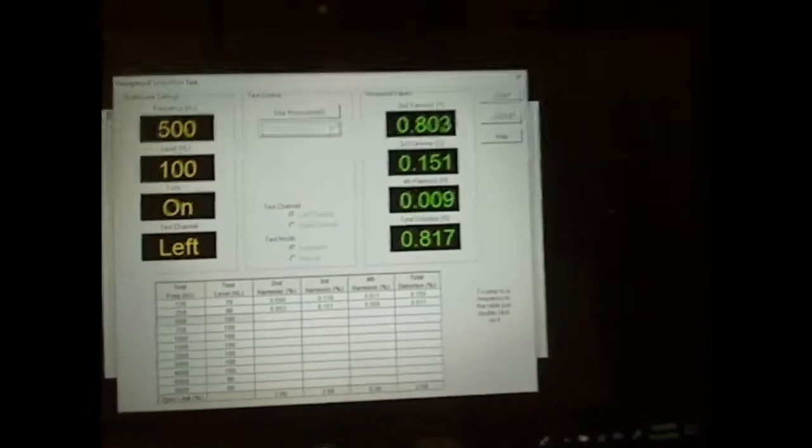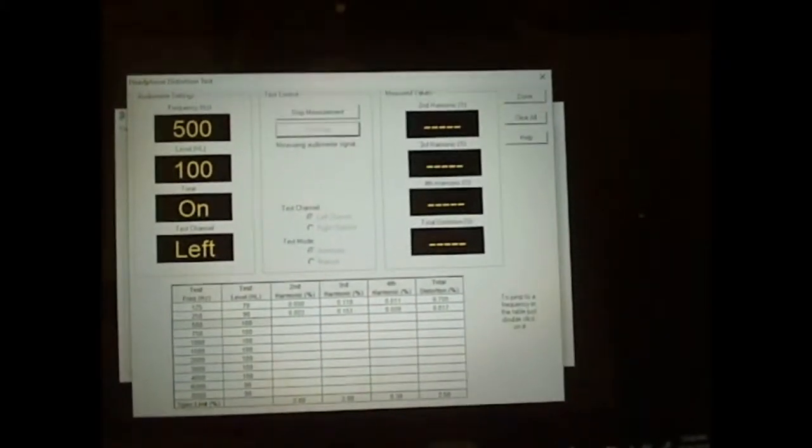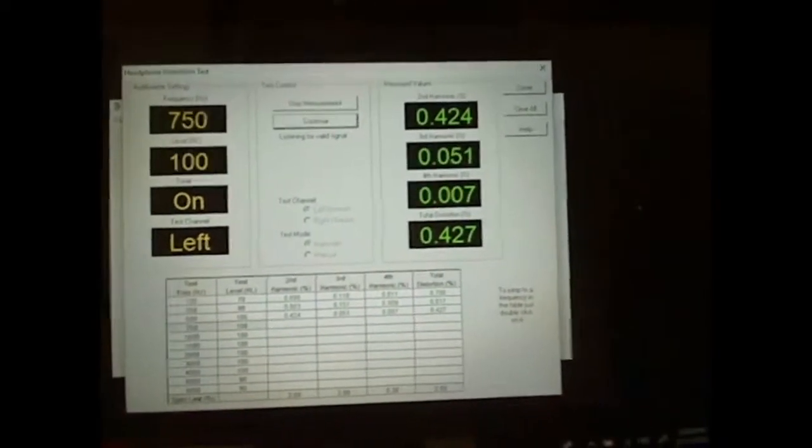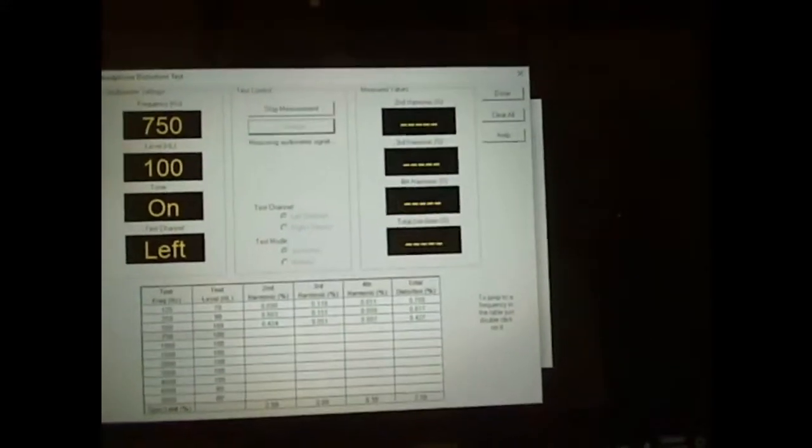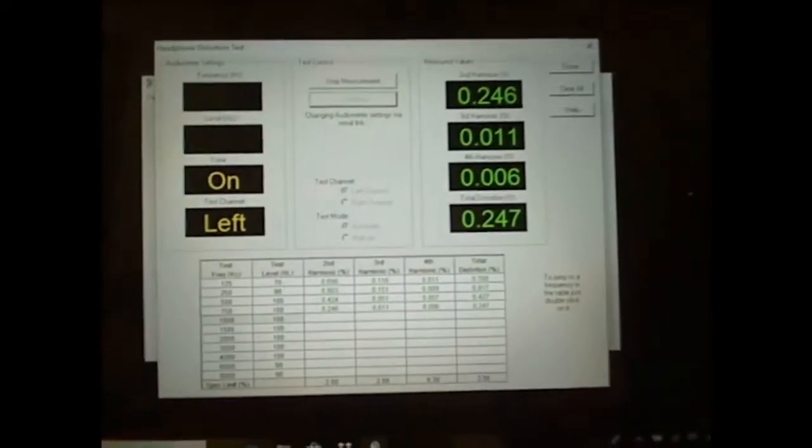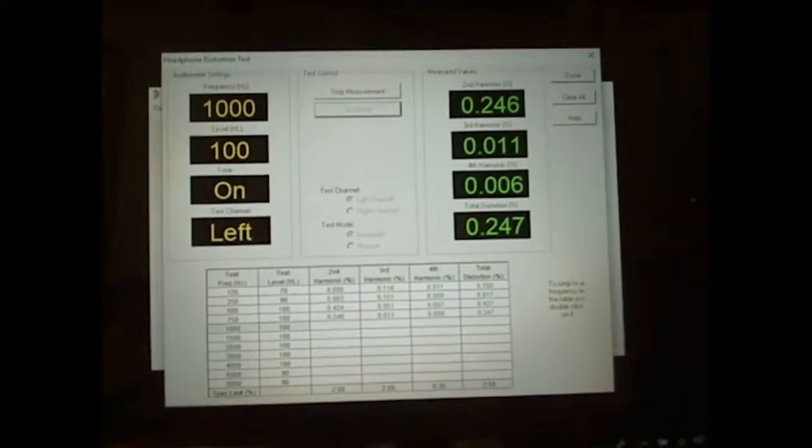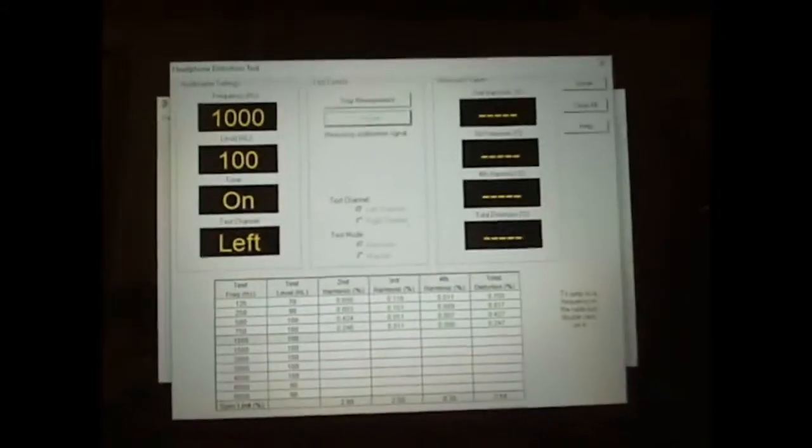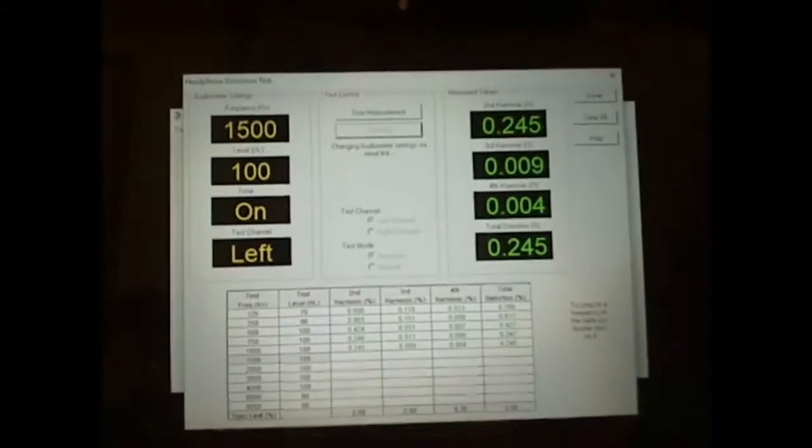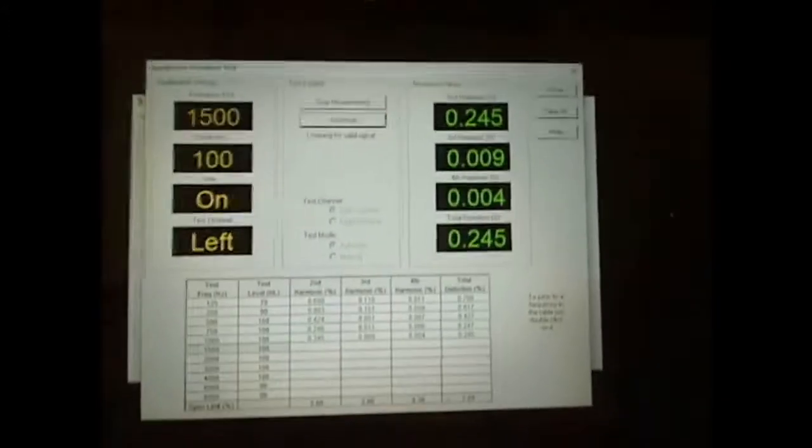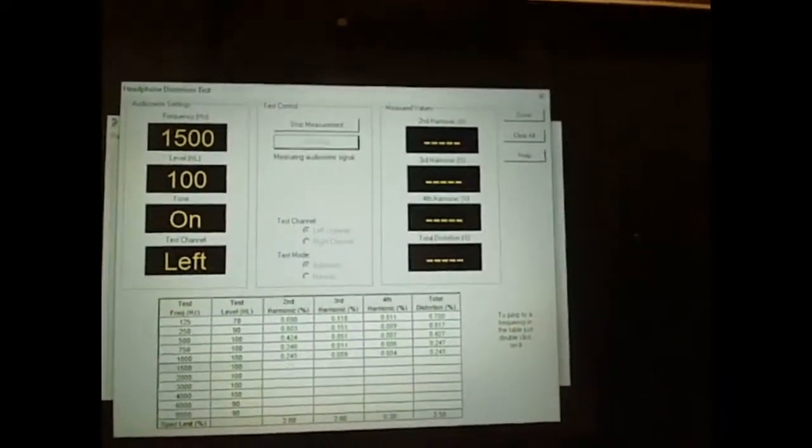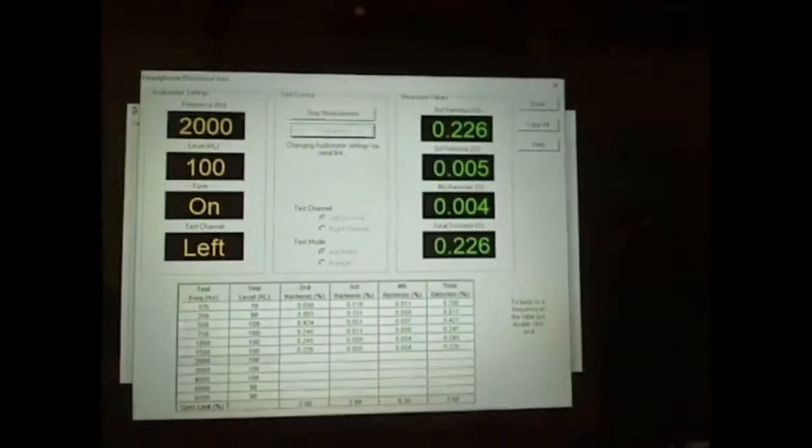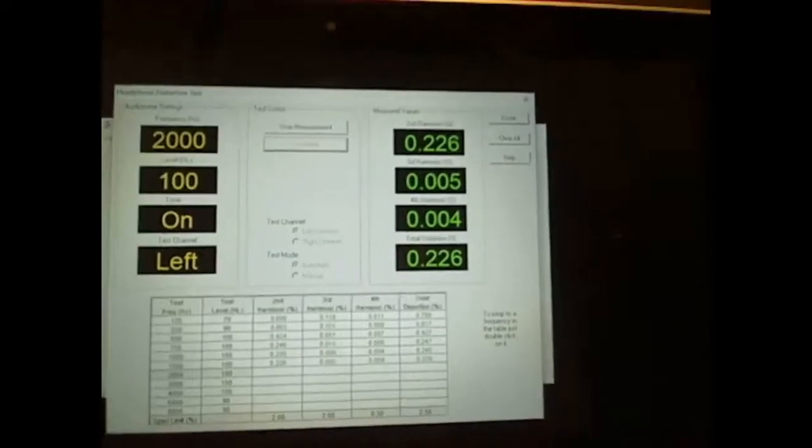I'll just let this run a little bit. And the reason I'm staying with this is because I want to show you that when it finishes up with this acoustical portion, it'll go into the electrical. And we'll test rise, fall, overshoot, crosstalk. Every function that that audiometer should have done to it in an exhaustive calibration is automatically done with the ACS system.